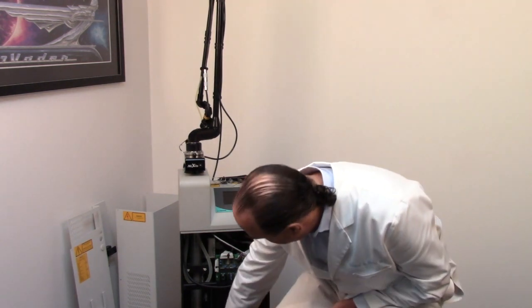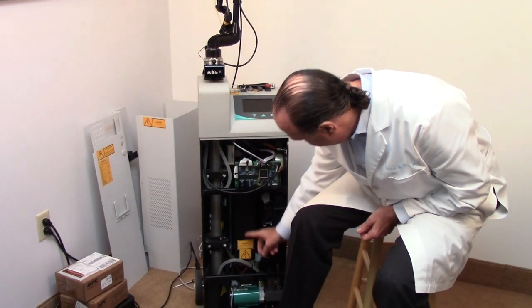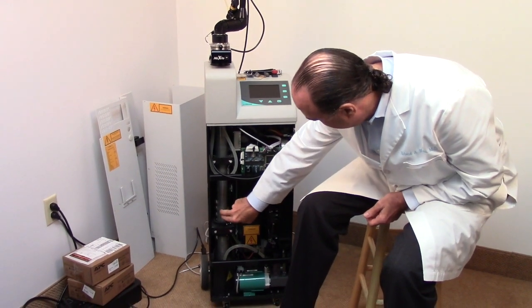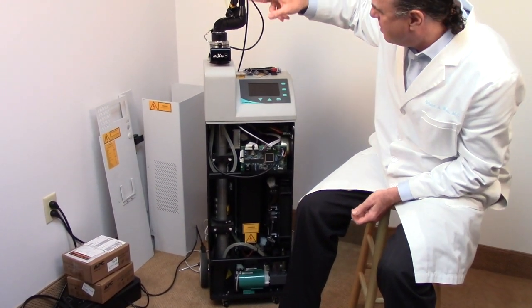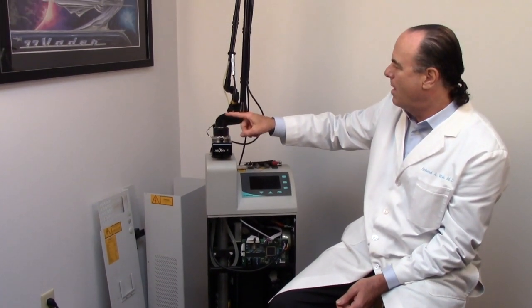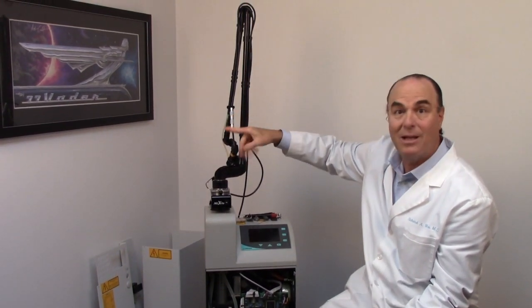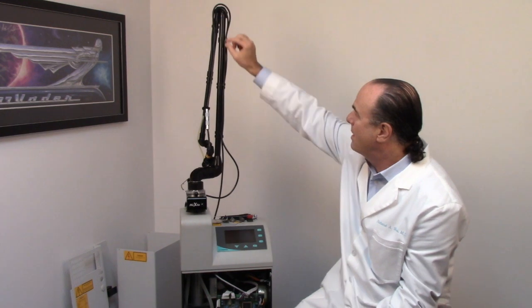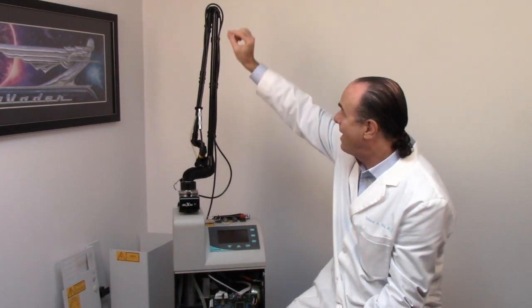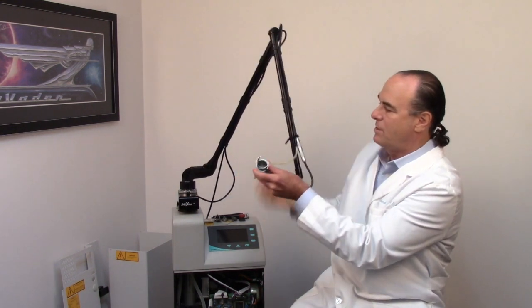So no CO2 gas is actually emitted in the room. That's all sealed in this chamber here, so this is the lasing tube. This is an energy supply that puts the energy through the lasing tube to create the electrons that come up this way. The laser energy then is directed through this arm, and there's an articulated arm with a lot of mirrors inside that have to be aligned and maintained also. By being bounced off these mirrors within this arm, that's the way it's applied to your skin.